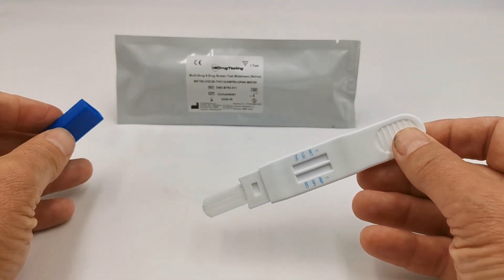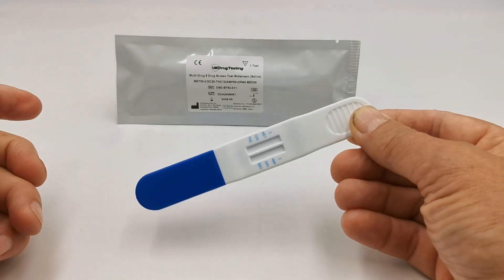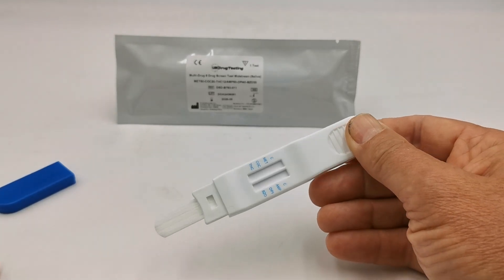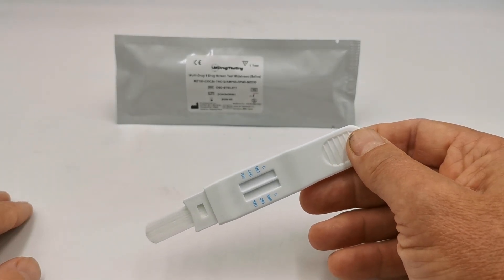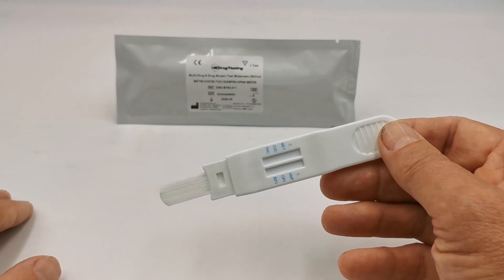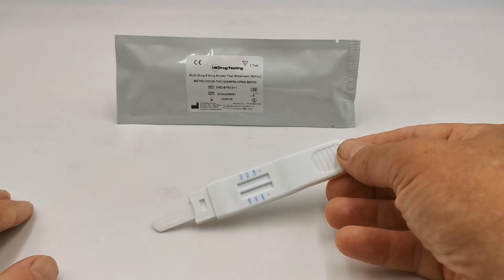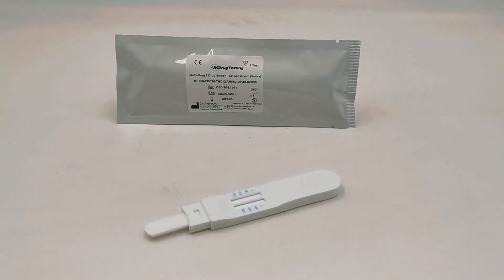Don't remove these from the foil until you're ready to perform the test. They come with a cover on, so remove that cover to expose the prong. The procedure is to place the prong into the donor's mouth and ask them to feed saliva onto it. Good technique is to ask them to rub the tongue around the top and bottom teeth, front and back, then lap the base of the mouth in a forward motion up the back of the lower teeth for five or six motions before introducing the test. This stimulates saliva production and dislodges debris around the teeth and gums.